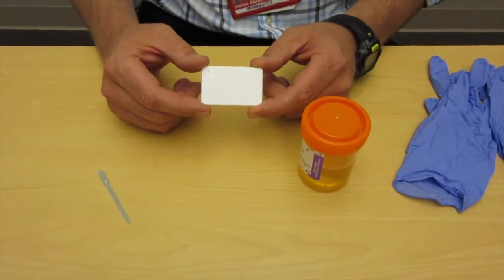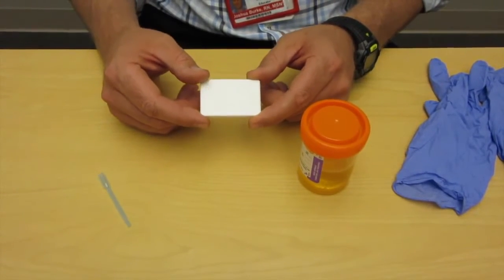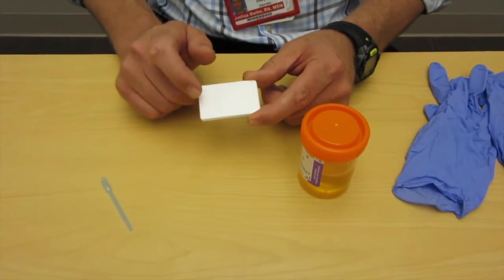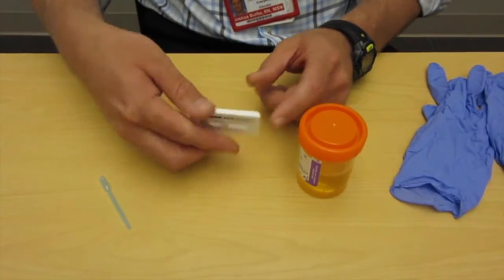So it's policy that they have to be labeled when they're out of your immediate possession. People have also used micro sharpies and things like that just to write the demographic information that's associated with the test itself.